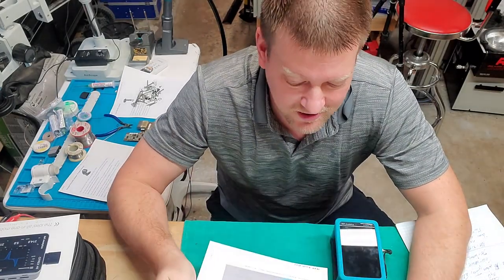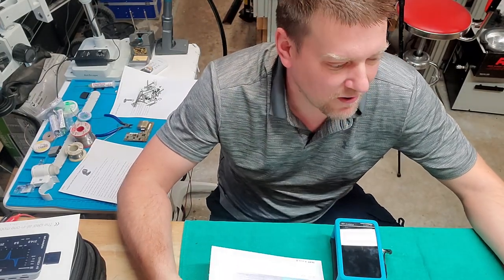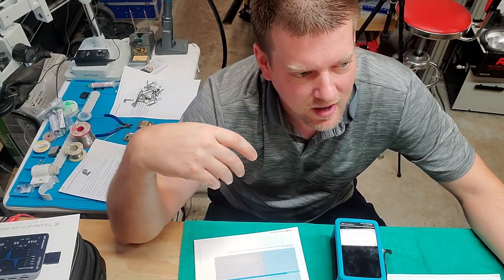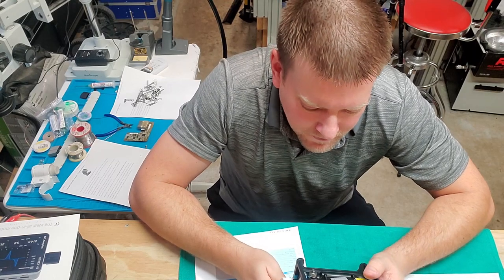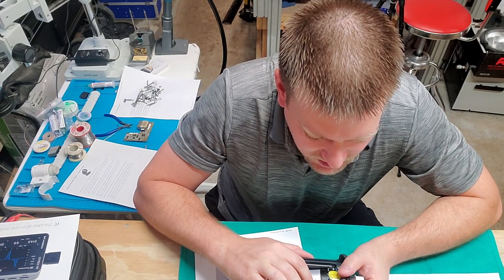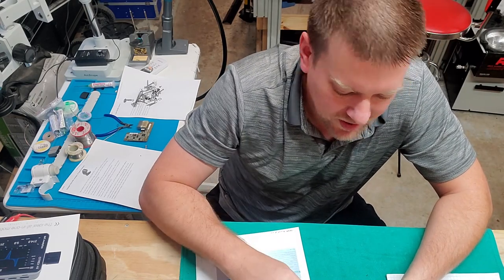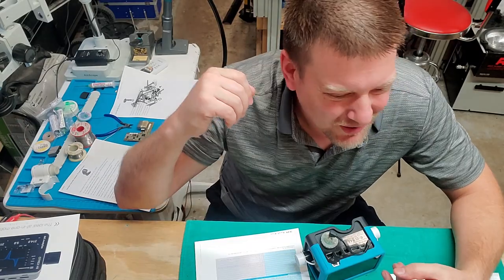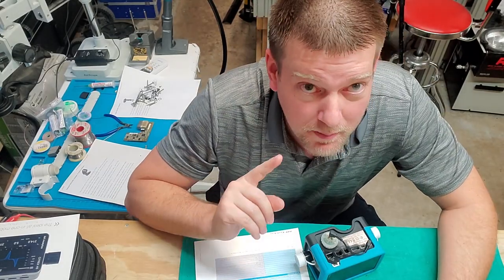Now there's a lot of detail on the spec sheet. For pressure, someone told me they weren't happy that this device can't do negative pressure, but it can. On the back it's got a port rated at 10 bar, and a couple of other ports that are plus or minus 200 millibar. It will take pressure readings in the main flow channel plus from the back at a couple of different spots. The pressure range is negative one bar to 10 bars.